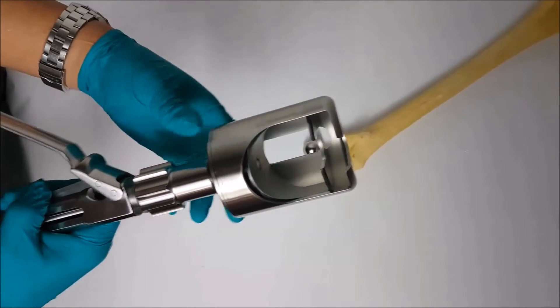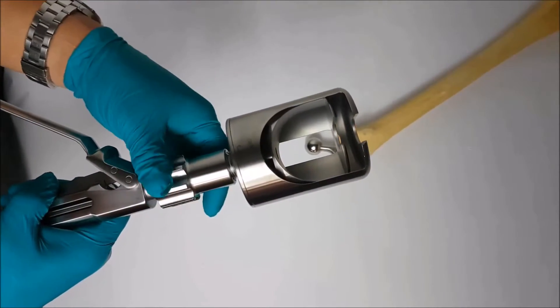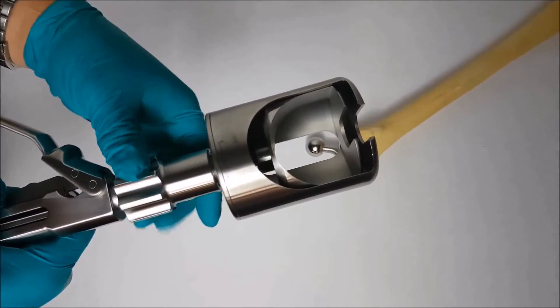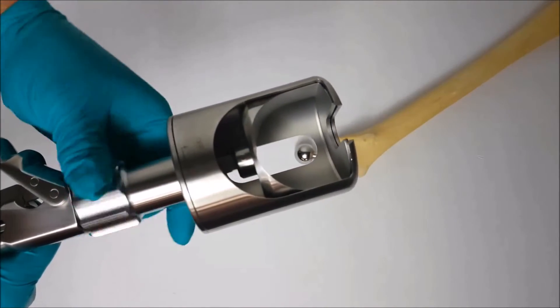Next, twist the adjustment knob to the right until the top of the ball retainer sleeve and the inside of the head disassembly cap are flush.